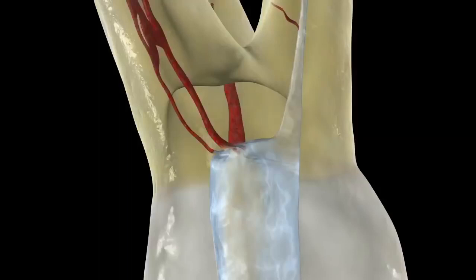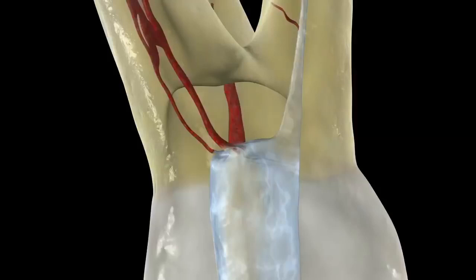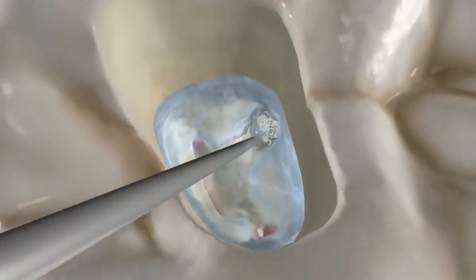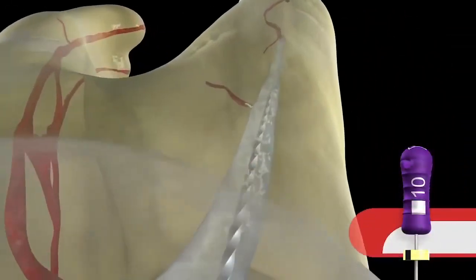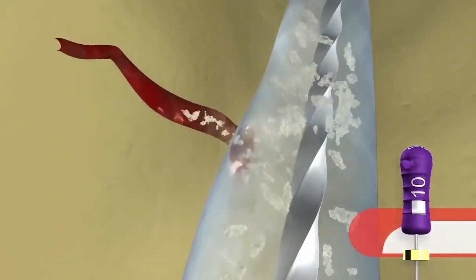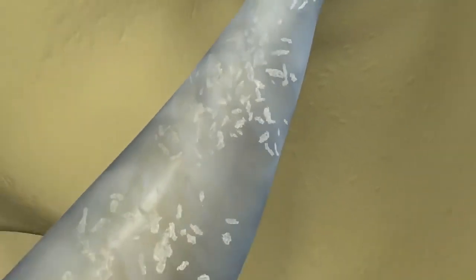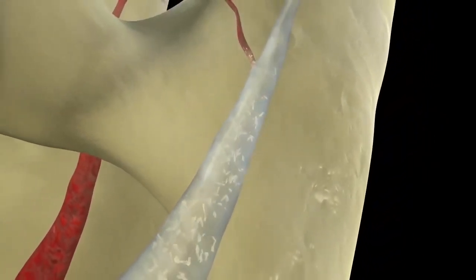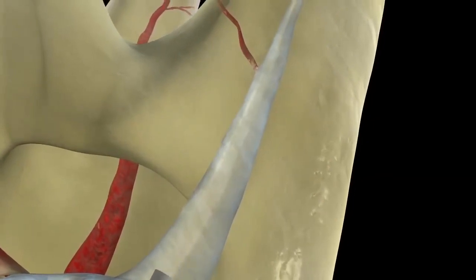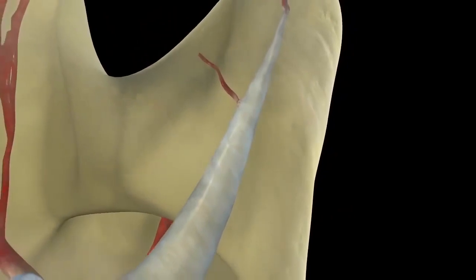After you take out an instrument with a 19% taper and four Gates Glidden equivalents at D6, 7, 8, and 9, there will be significant debris inside the pulp chamber and canal. So irrigate after every rotary file. The endodontic protocol is: after removing any rotary file, always irrigate, recapitulate with a 10 file, and re-irrigate. The 10 file breaks up debris and moves it into suspension so it can be more effectively liberated from the canal space. Keep your lateral anatomy open during the shaping exercise.